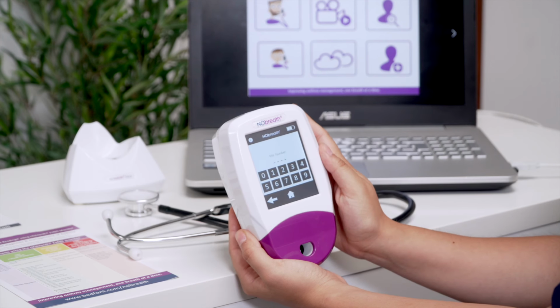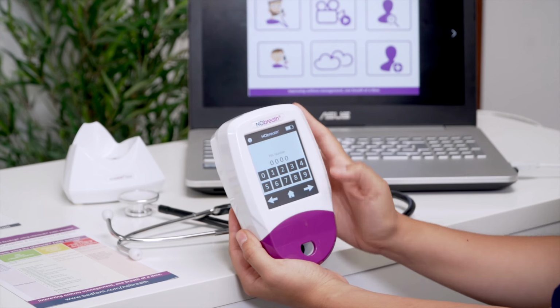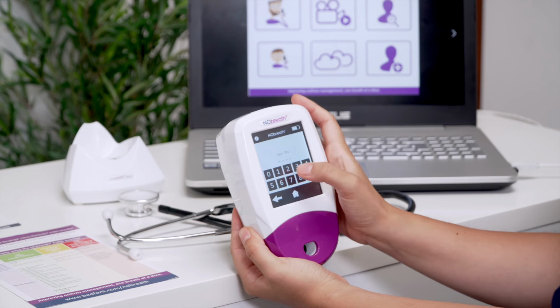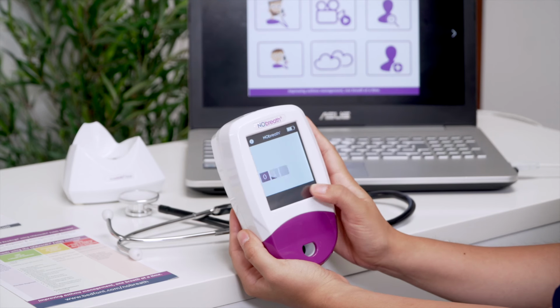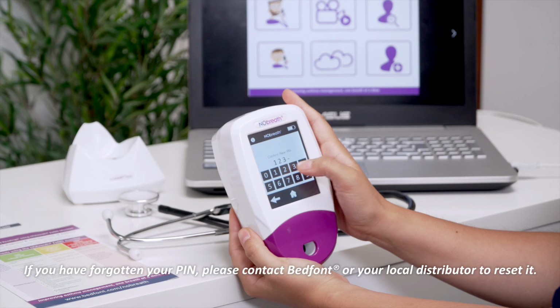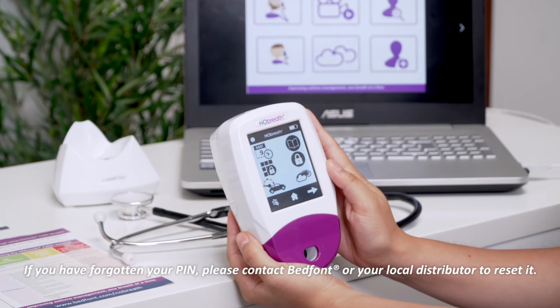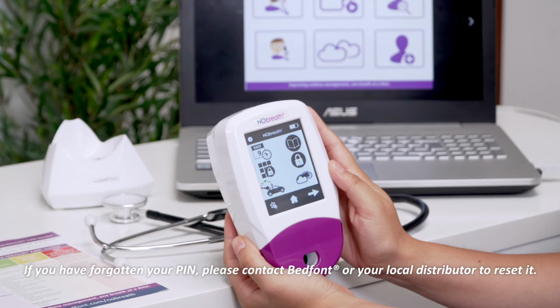Enter your 4-digit code and press Next to continue. Enter a new 4-digit PIN and press Next to continue. Re-enter your PIN to confirm the new 4-digit code and press the tick to save. If at any point you change your mind, press the back arrow to return to the previous screen or the home icon to return to the main screen.